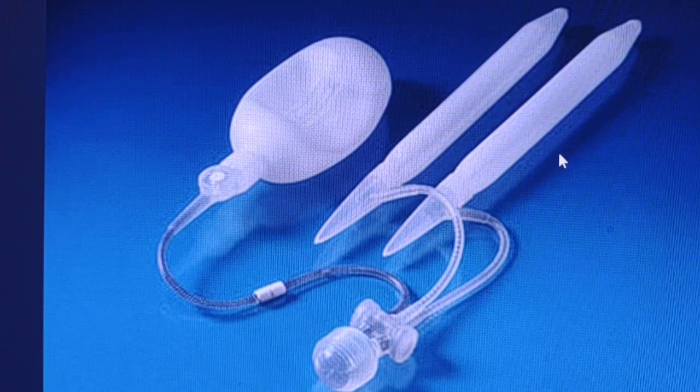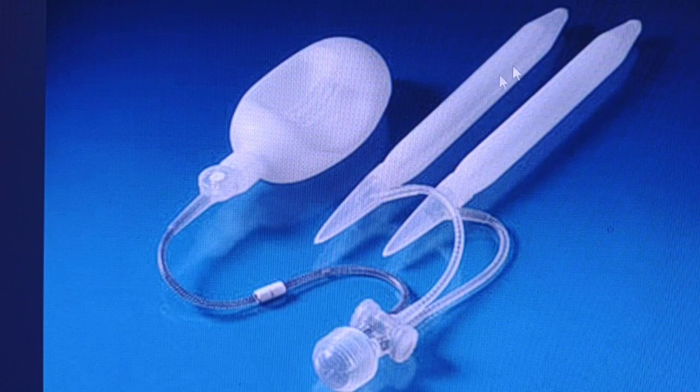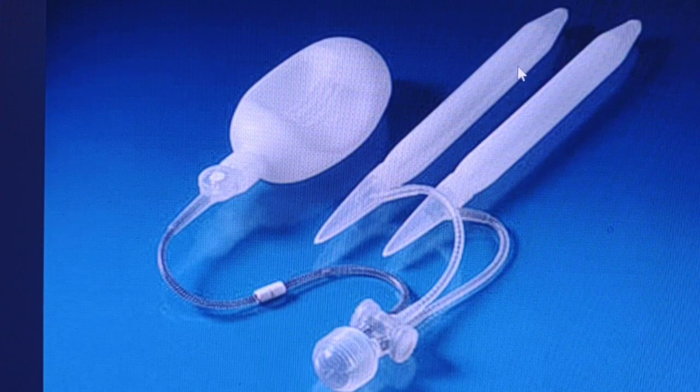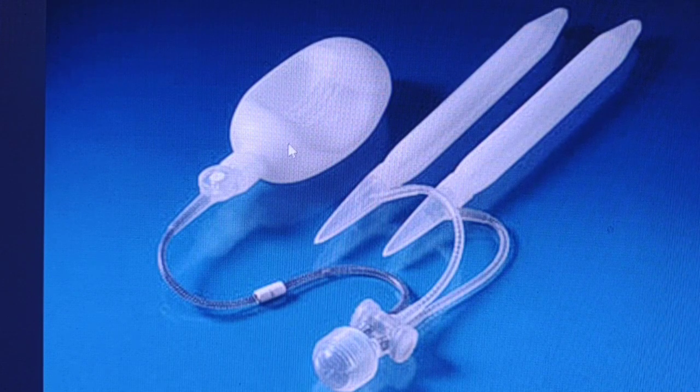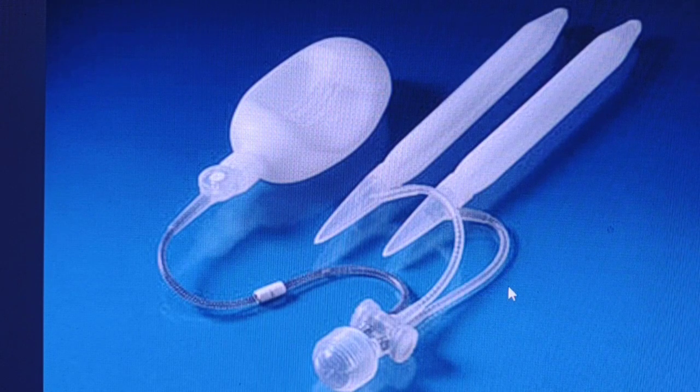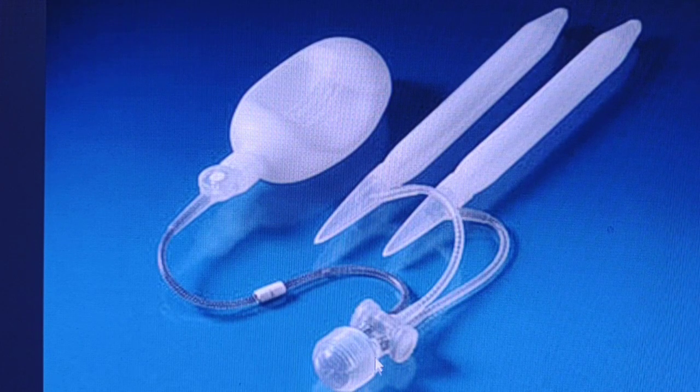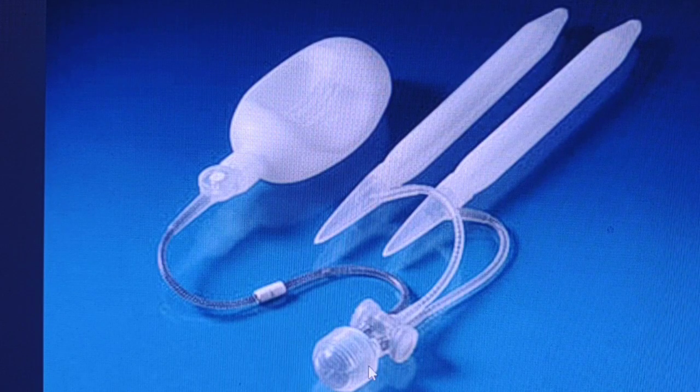Just to have an idea how it looks like, these are the implants for the penis. Here is the reservoir which contains a special fluid. These are the interconnected tubes and here this is the pump which is placed in the scrotum.